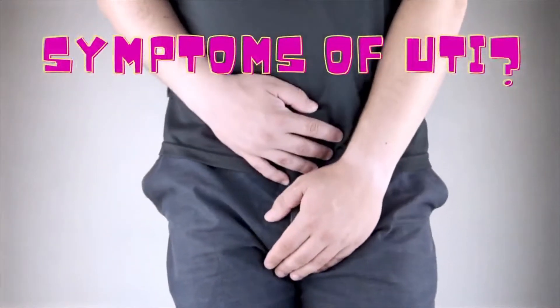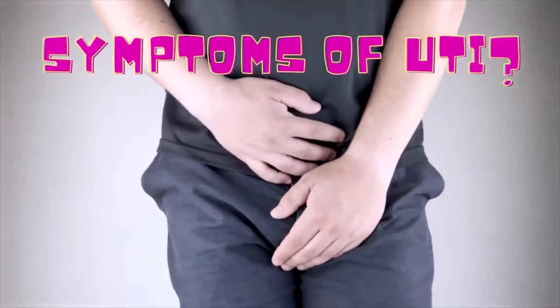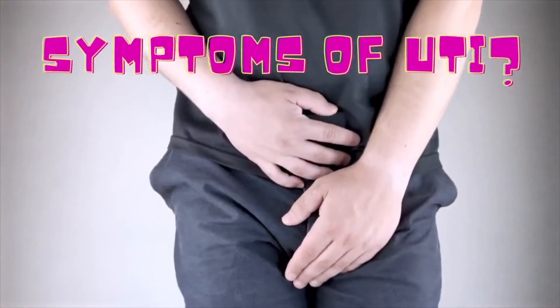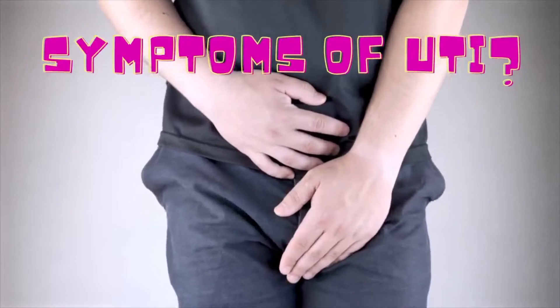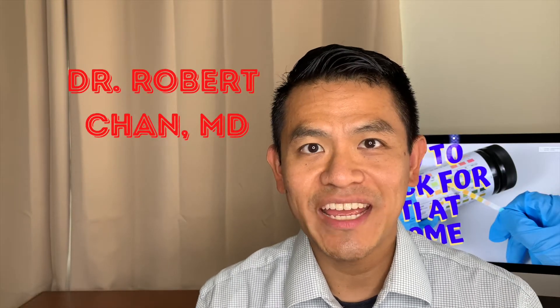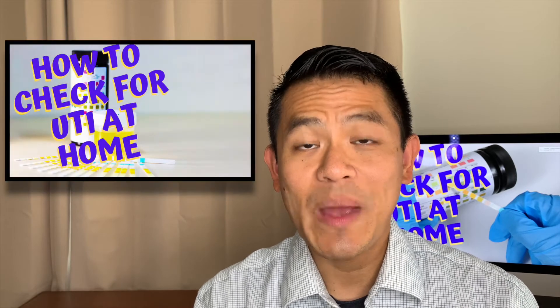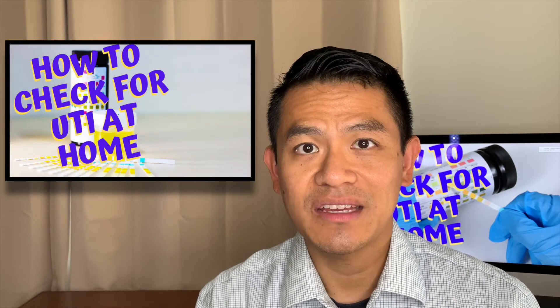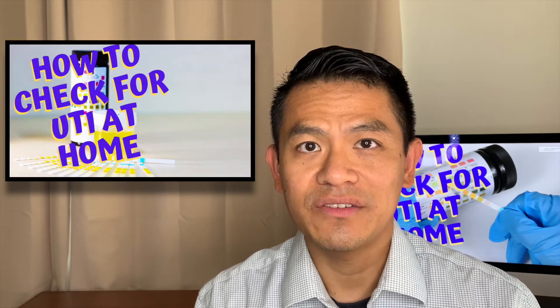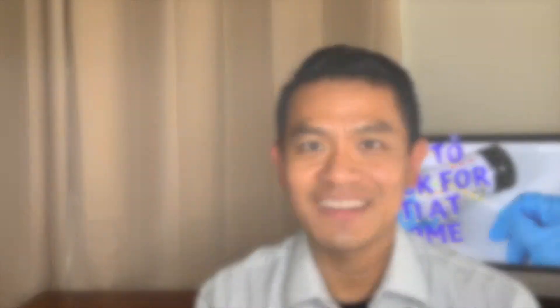Have you ever had symptoms of a urinary tract infection but couldn't make it to your doctor's office or clinic? Hi everyone, I'm Dr. Chan. I'm a board certified urologist. Today I'm going to teach you how to check your urine for a urinary tract infection at home using a urine dipstick.